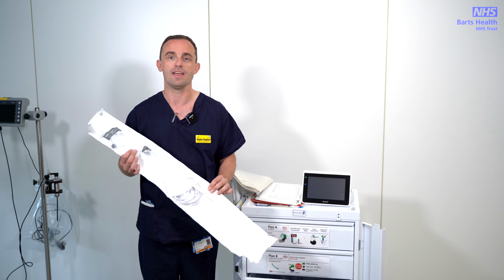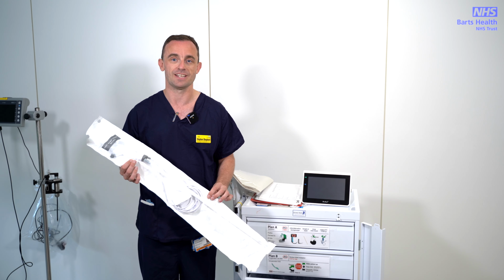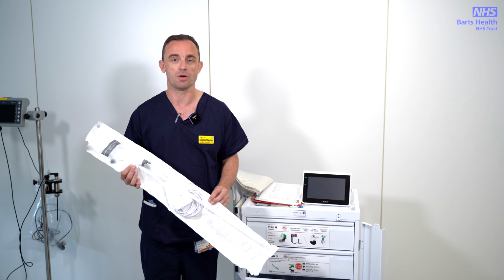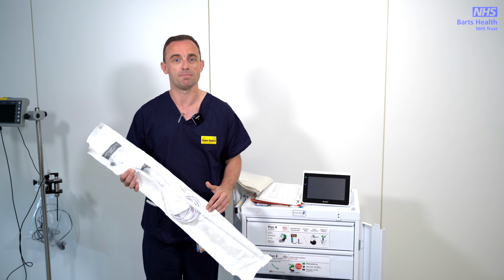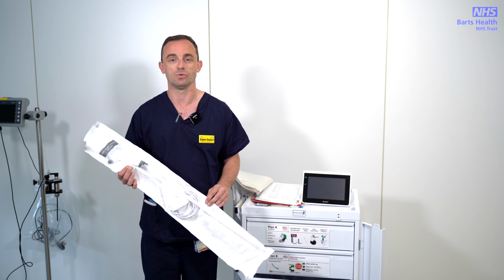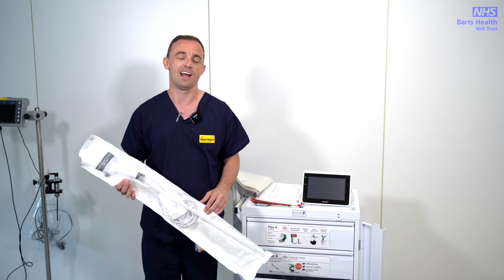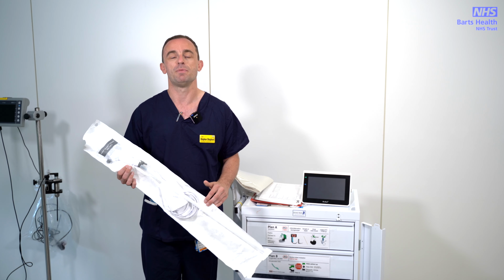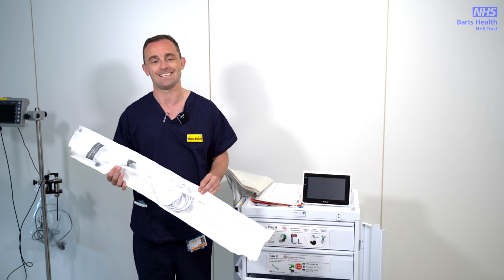We have a grey, which is a slim aScope, best suited for fibre optic intubation. We also have green and amber aScopes, which again are disposable. The amber has a bigger working channel, so is generally the best option for flexible bronchoscopy, where you need to do suctioning or tracheal toilet. The green is a kind of in the middle, so it can be used for diagnosis, but has a smaller working channel and so may block with secretions if used in that setting.